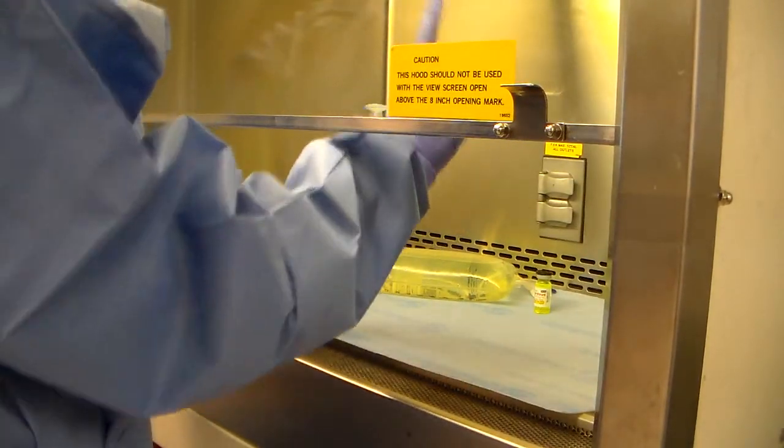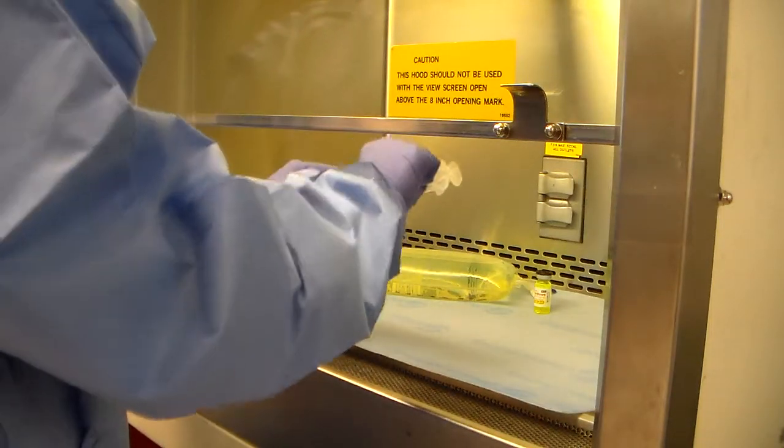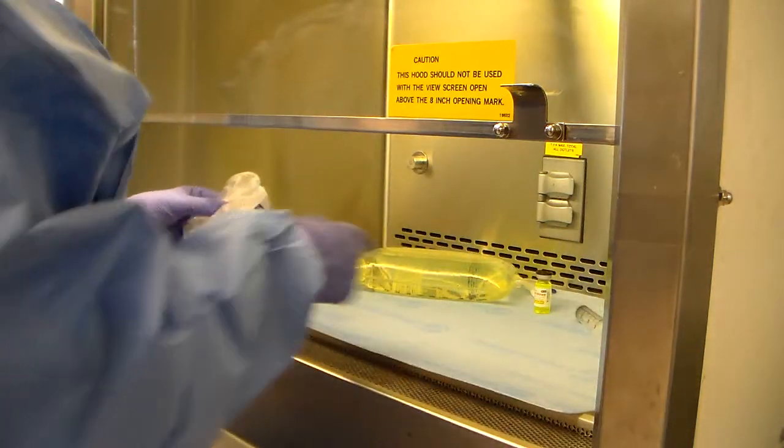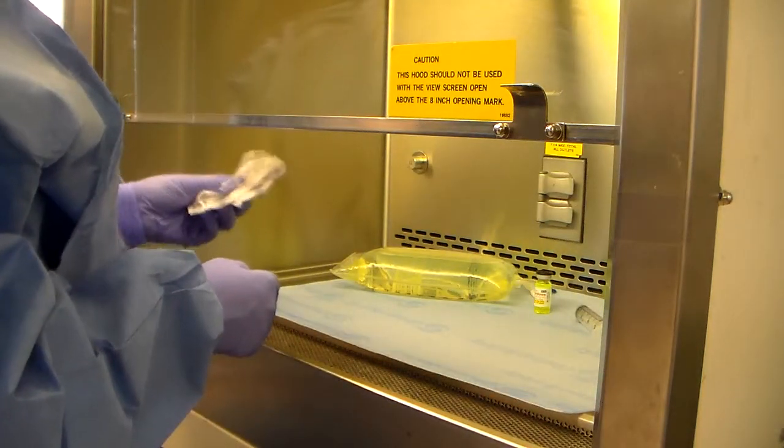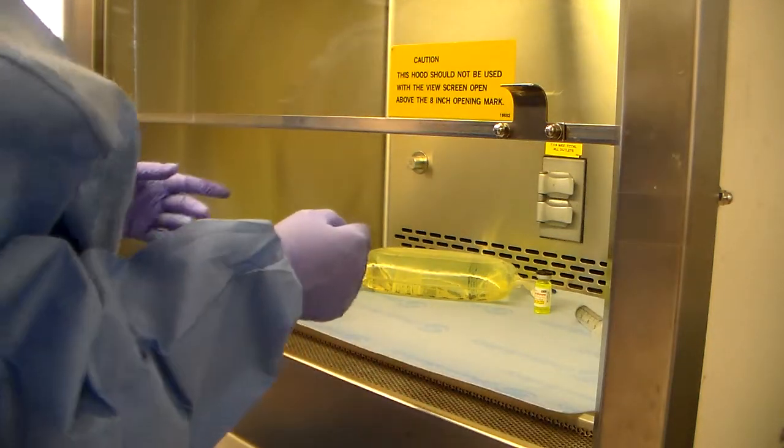Your airflow is coming from top to bottom now. That's why I opened it this way. I'm going to go ahead and place it on my chemo mat, like so. This guy, I'm not putting it down. I'm going to go ahead and throw it away right away.